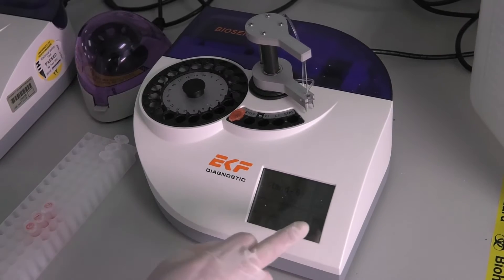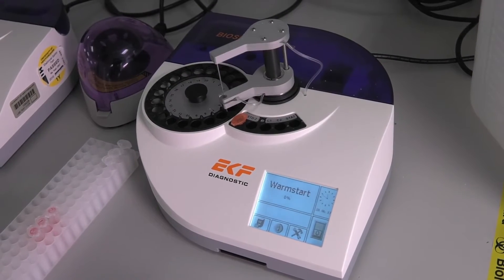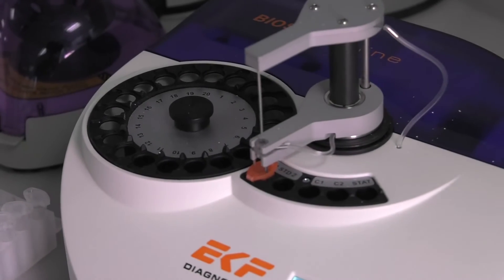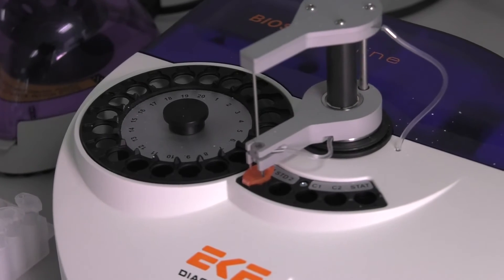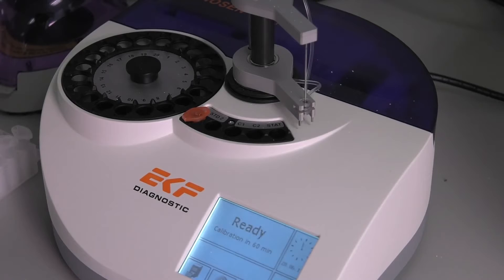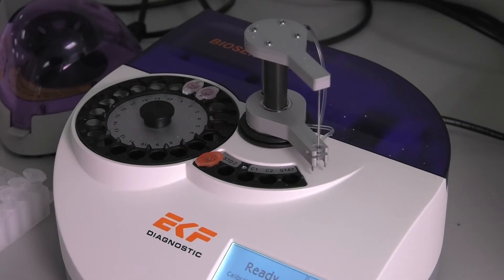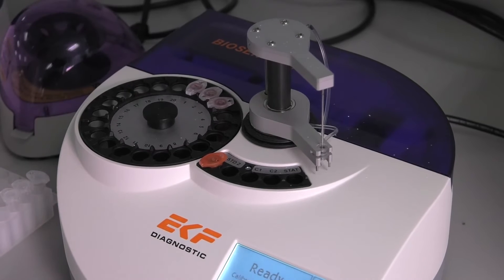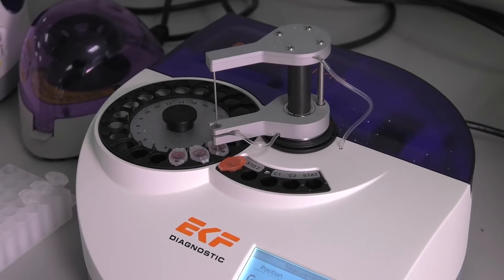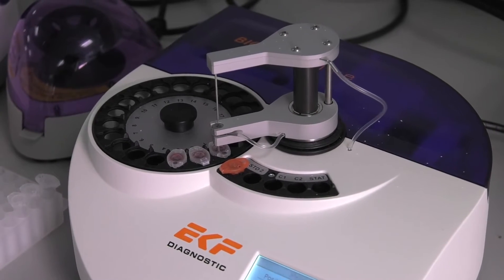First, turn the machine off standby using the button at the bottom right-hand corner. You also need to go and get a standard solution from the fridge in the blood lab — one of the red or orange tubes — into standard one. This takes a calibration and it's ready to go. Put your sample into the number one slot on the machine, and if you've got more you can put more on. Then click go and the machine starts to analyse for blood lactate and also blood glucose.